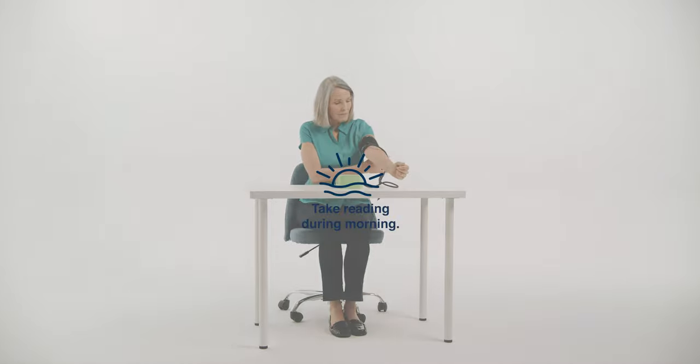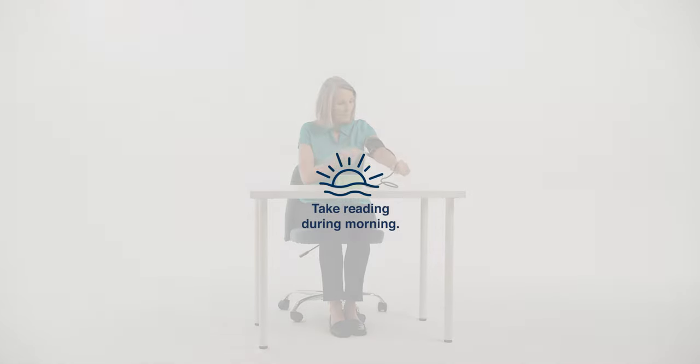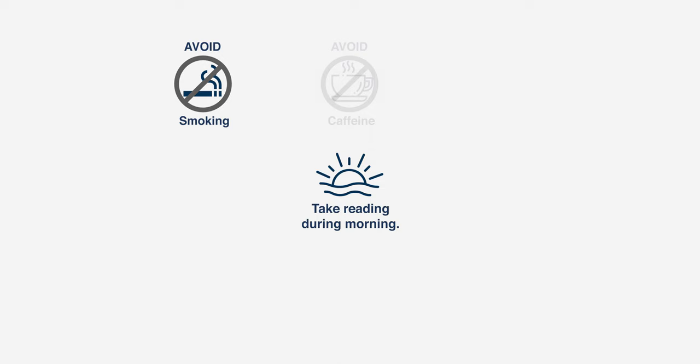The best time to take your reading is during the morning after you have taken your morning medication regimen. Try to avoid smoking, consuming caffeinated drinks, or exercising before taking the reading, as it can affect your results.